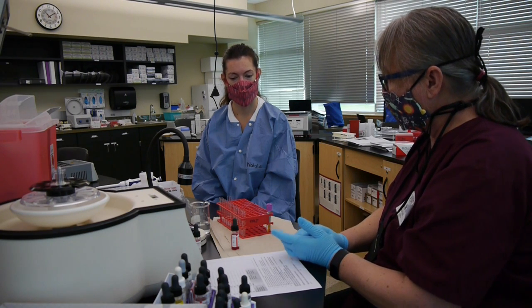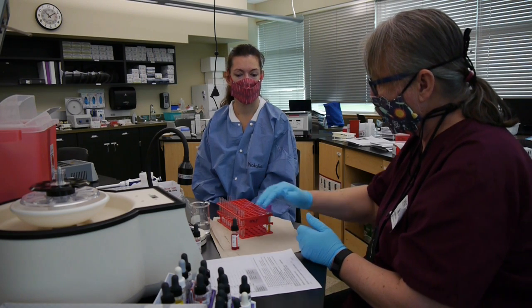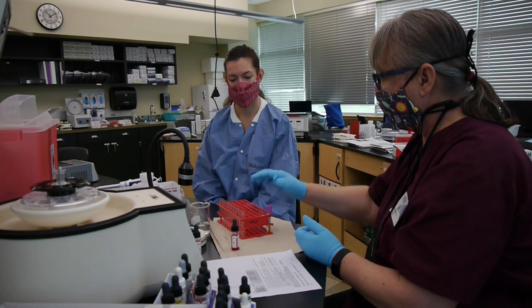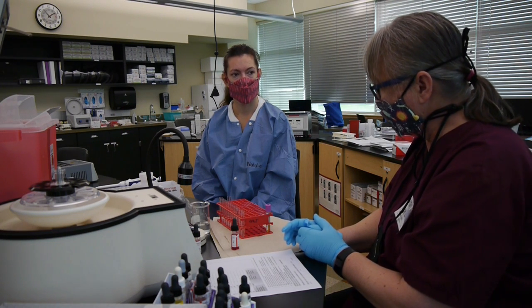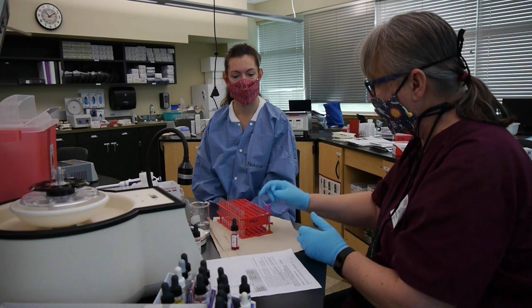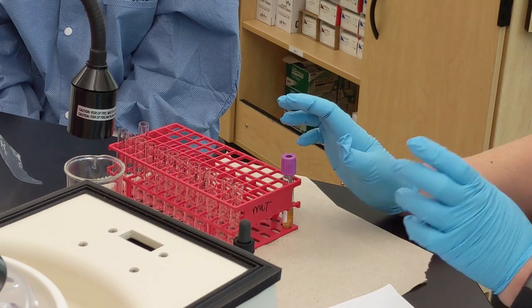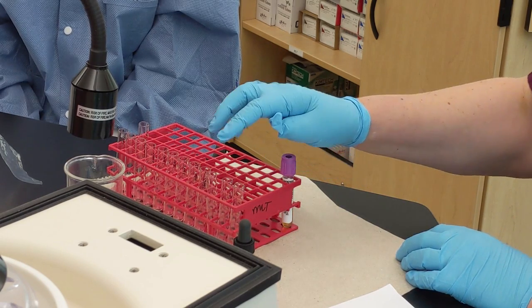It's very important to label your tubes with both the name of the product, the number of the product, and the tube number corresponding to your dilution. Tubes two through twelve: you're going to pipette 200 microliters (0.2 mL) of saline into each of those tubes. You're then going to pipette 0.2 mL of the sample into tube one, which is the neat — the original concentration of antibody.